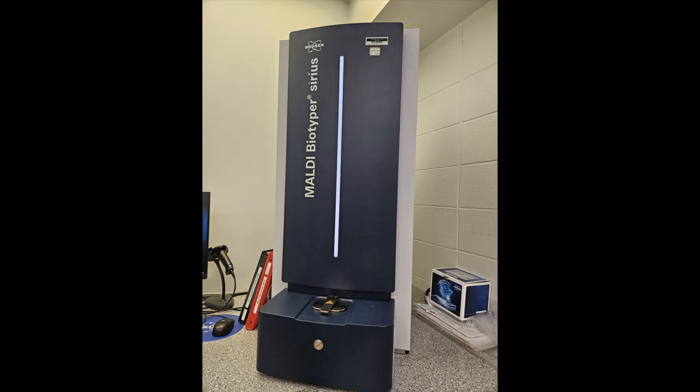This video is about the MALDI TOF analyzer, how it works, and how to use it. Specifically, how we can use it to identify unknown organisms.